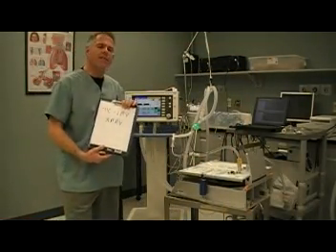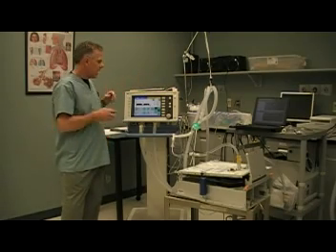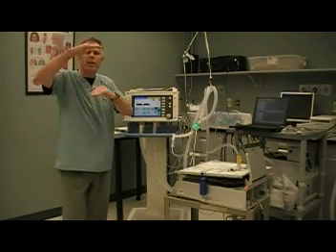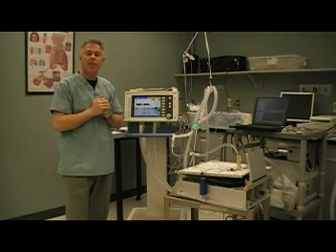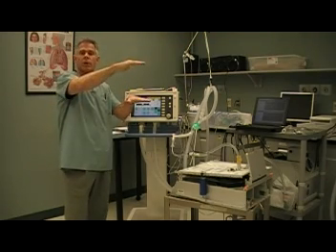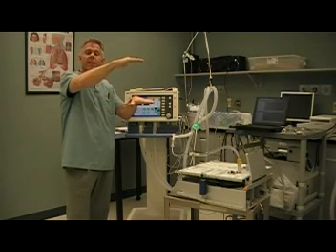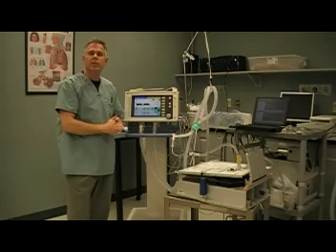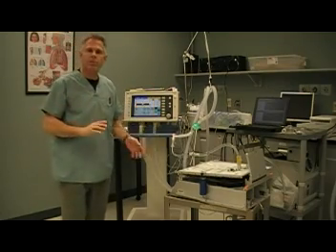This is a very radical mode of ventilation. Basically, what we're going to do is create two levels of pressure control. We have the expiratory pressure and we have the inspiratory pressure — IPAP and EPAP. The ventilator is simply going to cycle between those two pressures, regardless of patient inspiratory or expiratory effort.